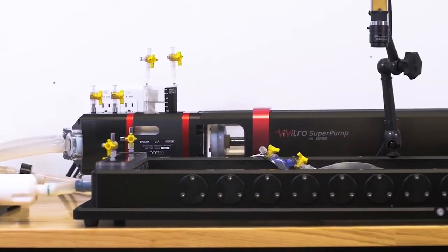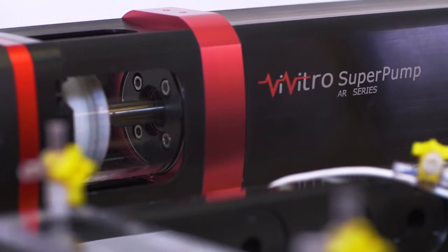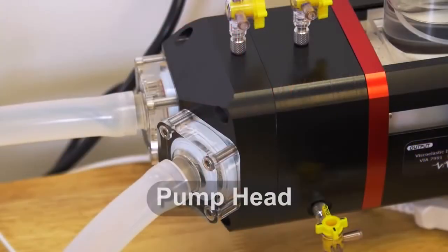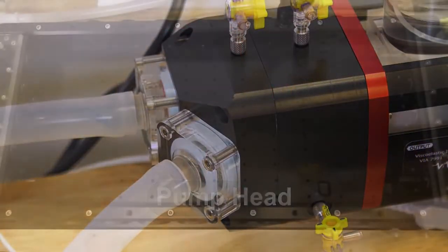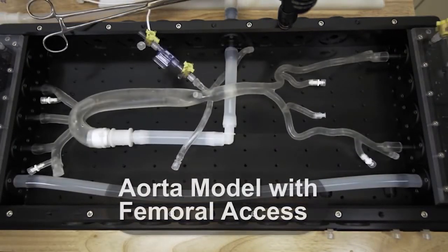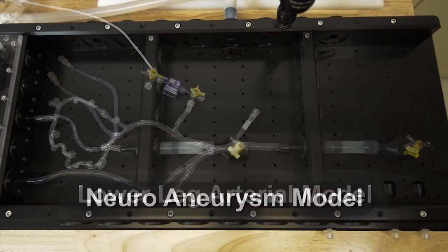The Vivitro Super Pump provides pulsatile flow from 3 to 200 beats per minute and up to 15 liters per minute output. A pump head facilitates circulatory flow using two valves. The tray is a modular platform that accommodates various anatomical models, which can be reconfigured for different model and connection sizes.